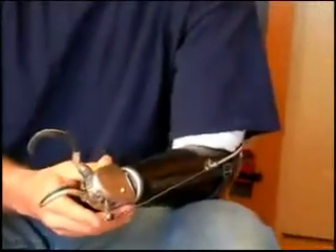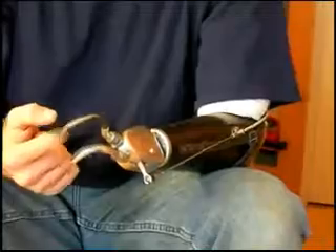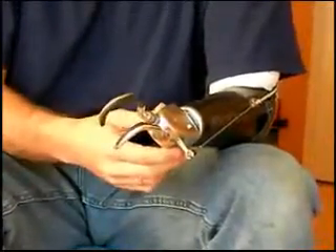The keys about this are two or threefold. One is it will lock in any position that you want to lock it in. For instance, it's fully open now. If I want to close it and have it lock here on something, it certainly will do that. A little bit more force will allow it to open again. I can also make it open just a little bit smaller as well.